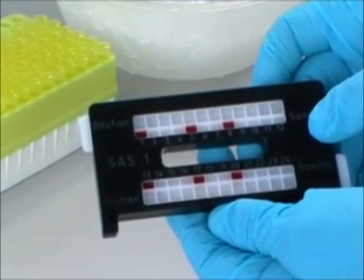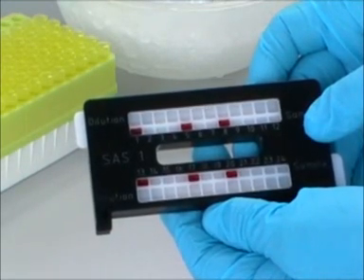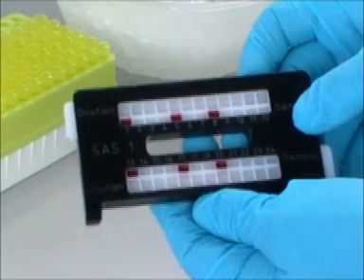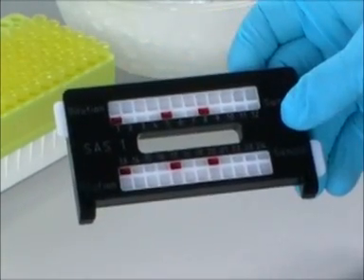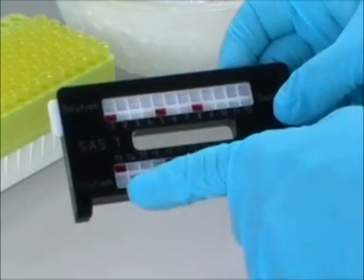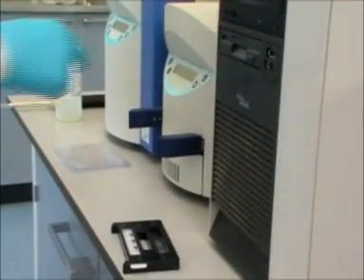Here in close-up you can see the loaded sample tray. For the alkaline gel we insert the sample strip into the upper slot and with the acid gel we would use the lower of the two slots. We've only loaded sample trays into both slots here to illustrate the alternative positions.